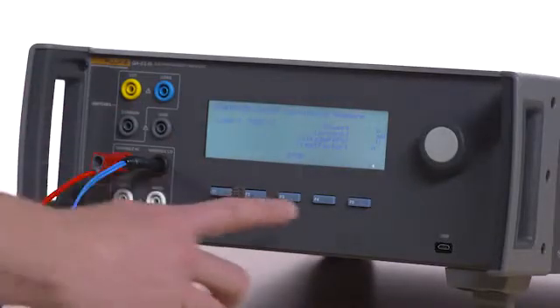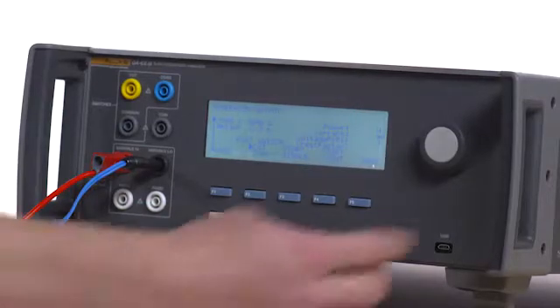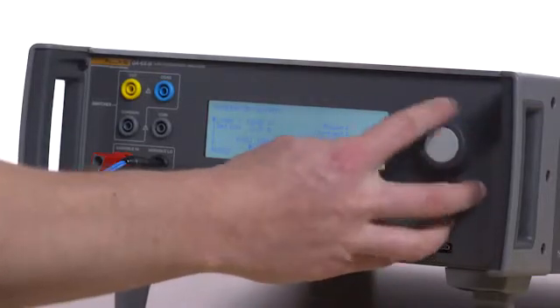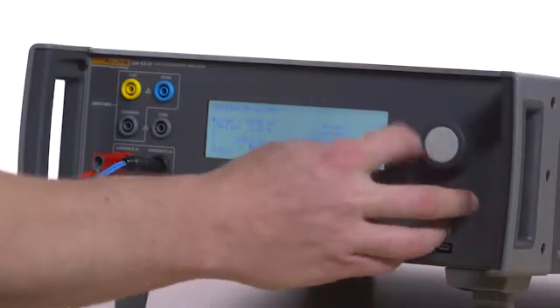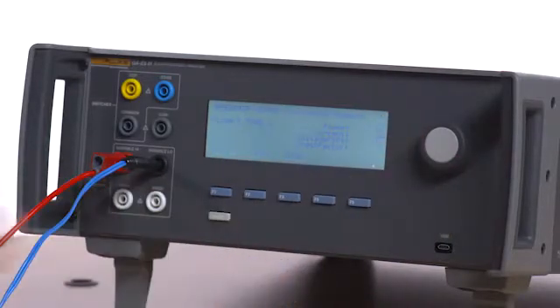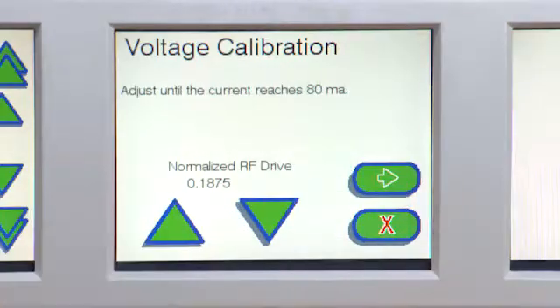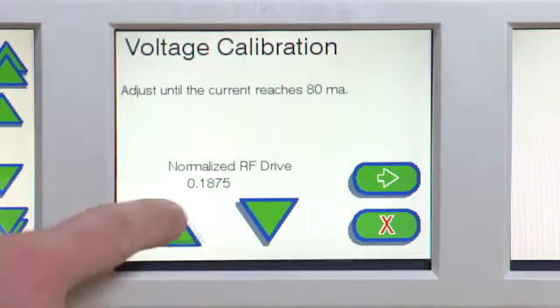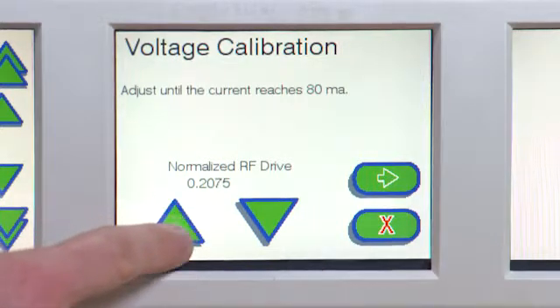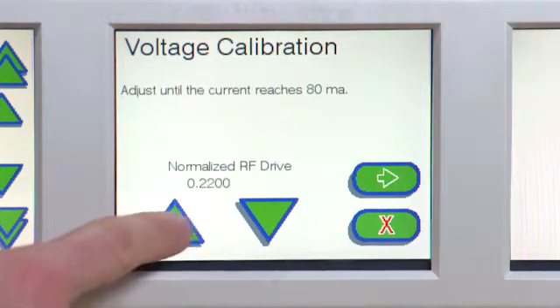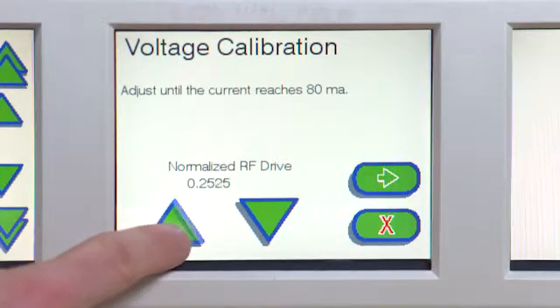Press F3 on the QAES3 to stop the test. Select 5000 ohms and then press F4 on the QAES3 for start continuous. Follow the on-screen instructions. Note: do not hold down the up or down arrows on the Force Triad. Irreversible damage may occur to the system.